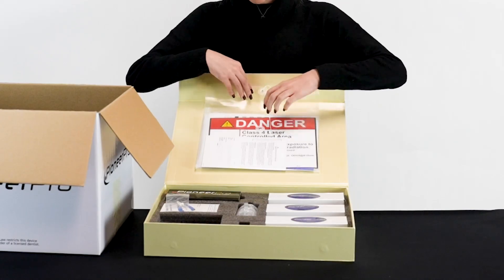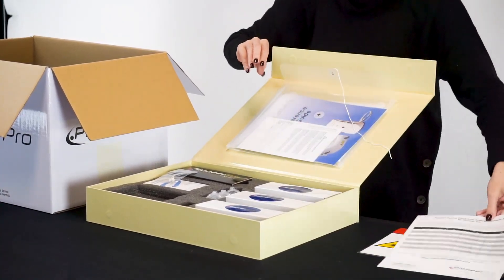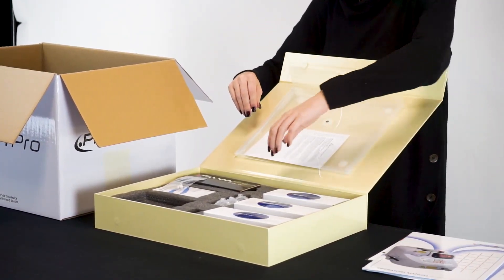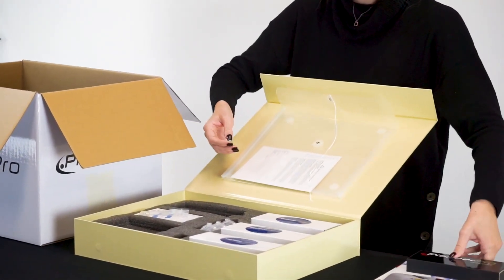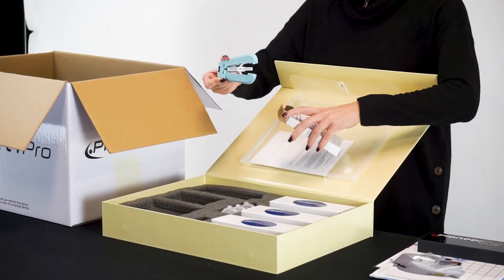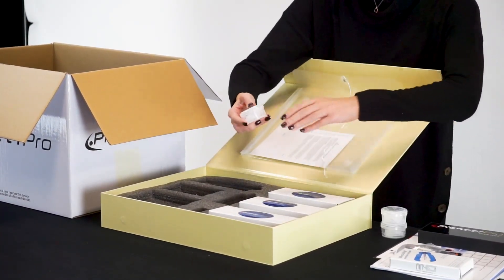Your CAO Pioneer Pro diode laser comes with one laser safety sign, one quick start guide, one owner's manual, one procedure guide, one autoclavable handpiece, two handpieces, one fiber stripper and cleaving tool, 20 straight disposable tips and 40 curved 60-degree disposable tips.